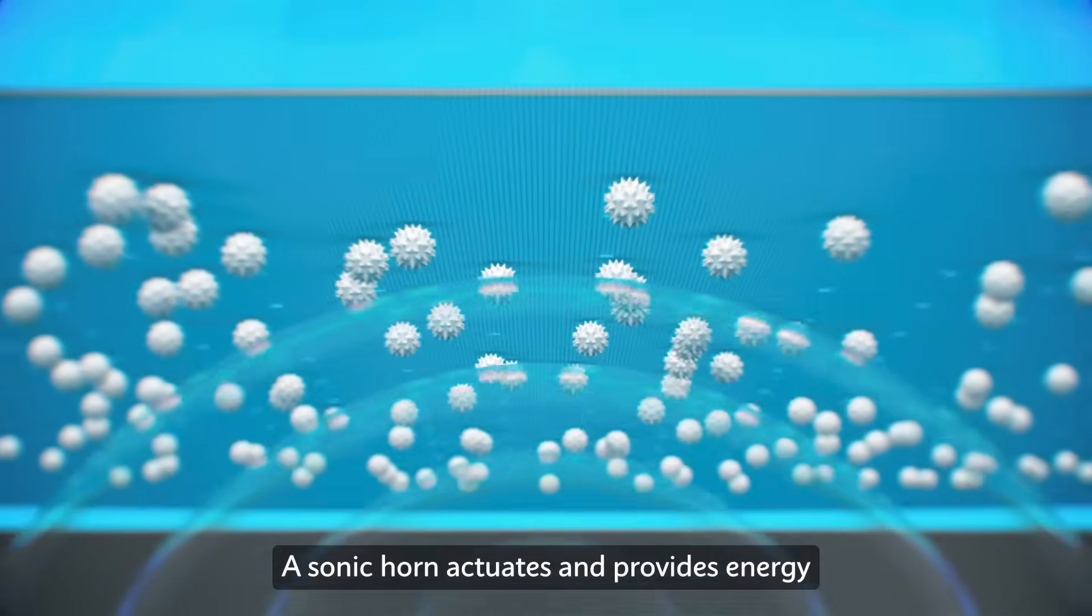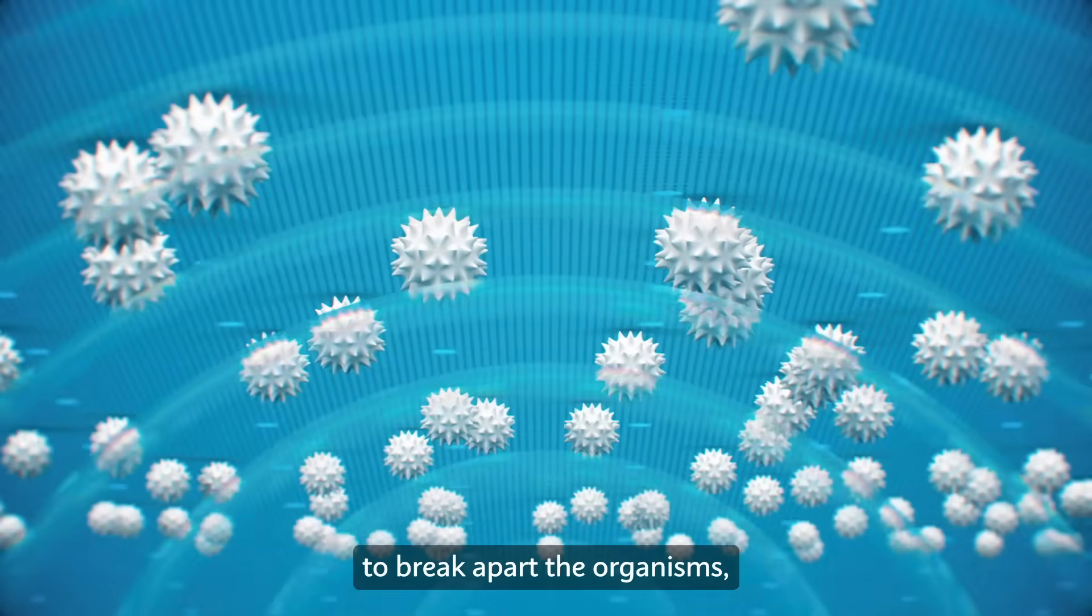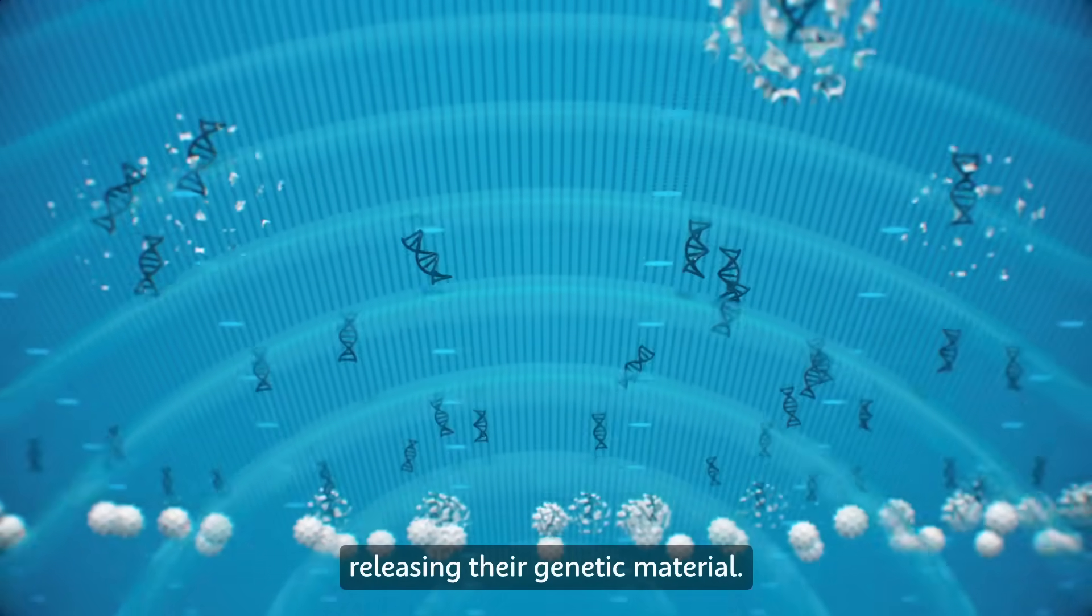A sonic horn actuates and provides energy to break apart the organisms, releasing their genetic material.